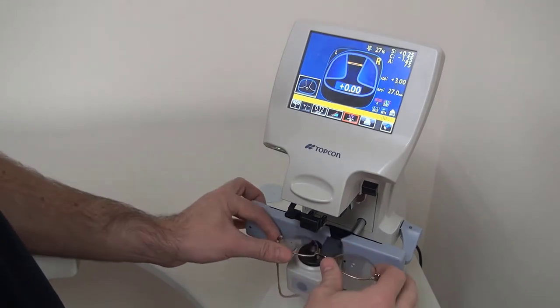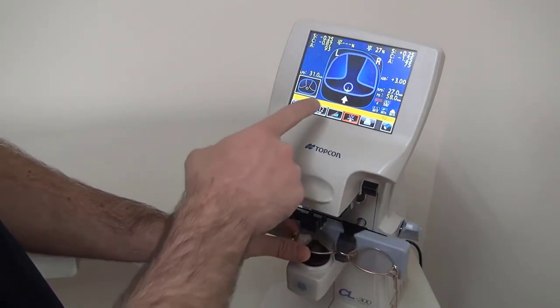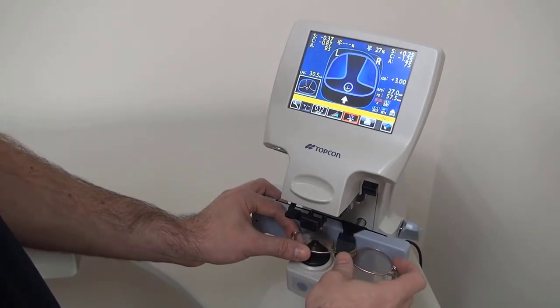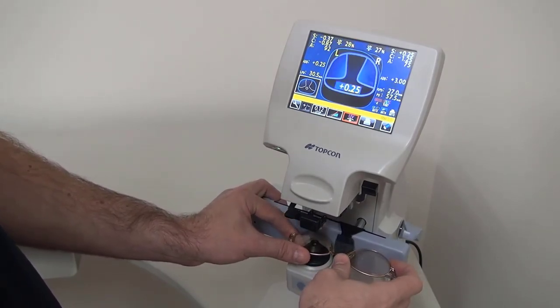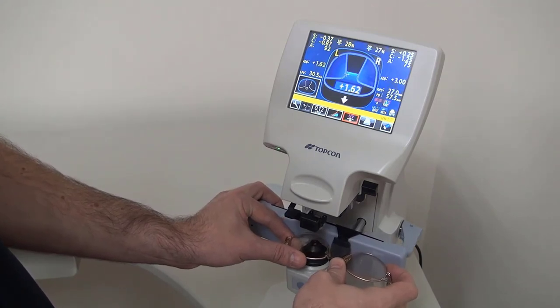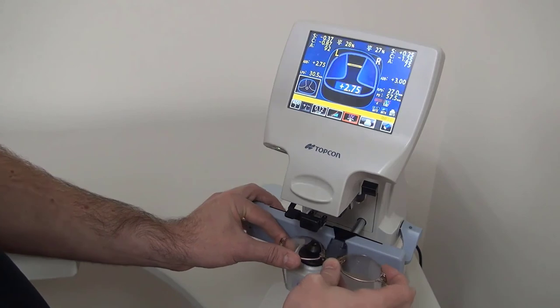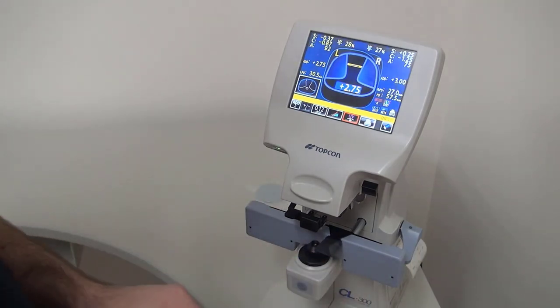I'm just going to repeat that for the other eye, but this time I can go right to the distance, because it already knows I measured a progressive on the right eye — I can go right to the distance for the left. So it locked in my distance correction, and now I pull it through the add channel, and then when I get to the end, it automatically locks in and prints our results.